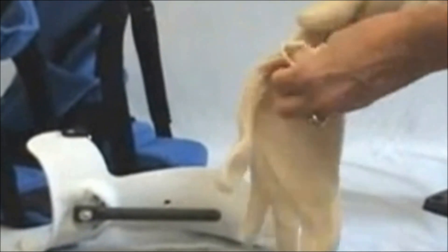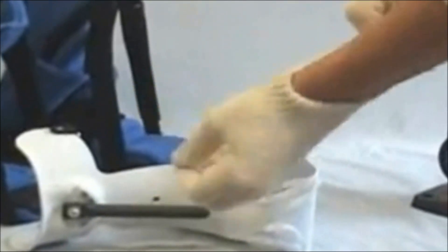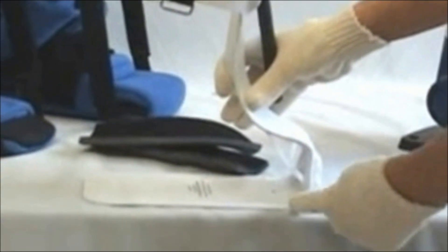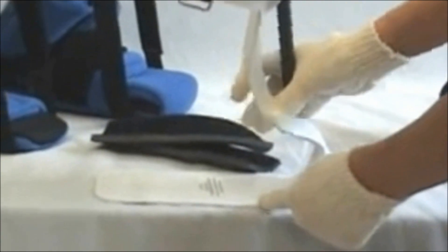Make sure that you keep the heat source completely away from the patient or anything that is flammable. Set the boot down and determine about a half inch from the heel toward the toe, about where the hole is, and that is where you're going to heat.